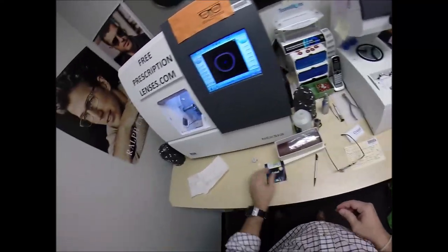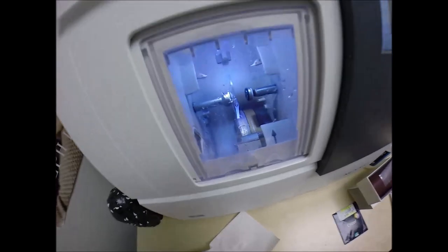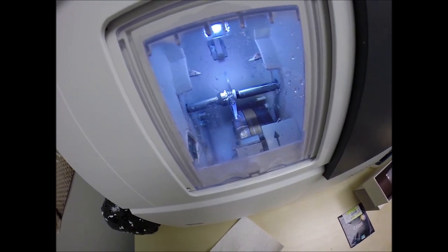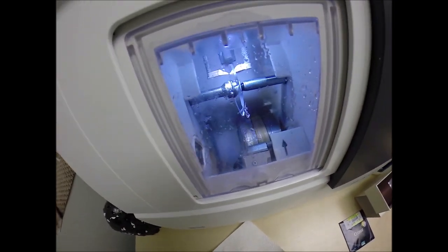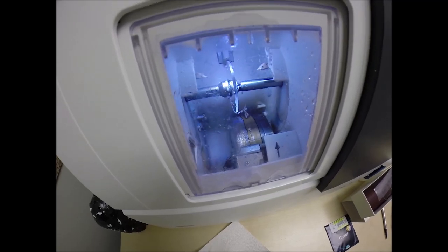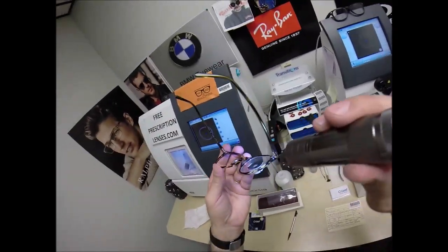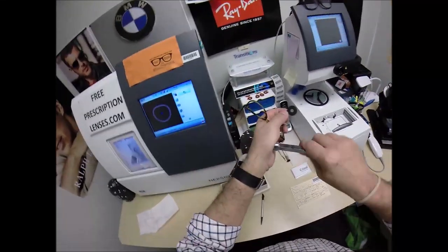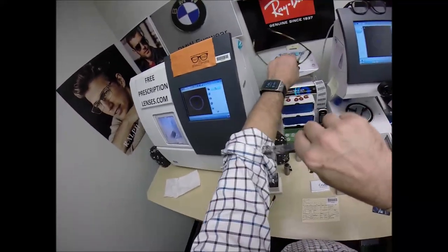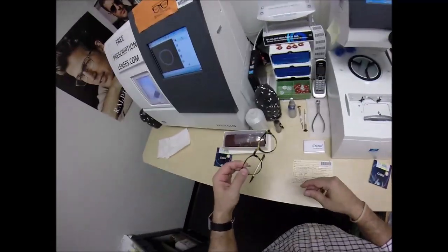Now that's the quick cold snap I was looking for. Flip that over to L, put that in and hit start. Just like before, the door closes, the clamp shuts — a little quieter this time. It's a rubber gasket that stops water from going inside the mechanical and electronic part of the edger. You have no edge thickness whatsoever in this frame. Pop that off, pull the sticker off, use my shirt-approved drying method, throw that on there — add that to my sticker collection. We're going to come down here to the lensometer.